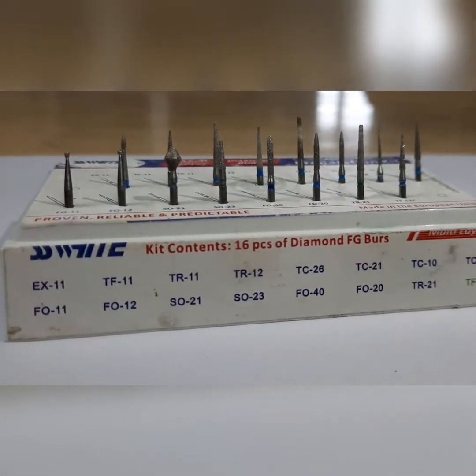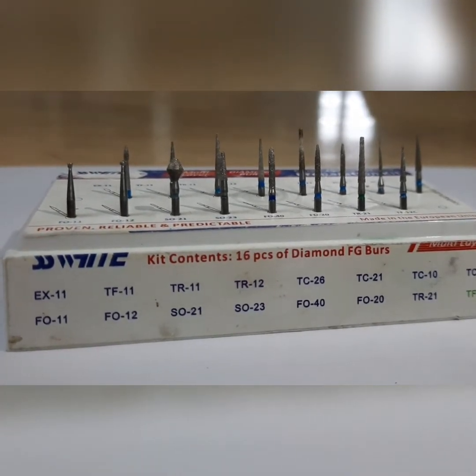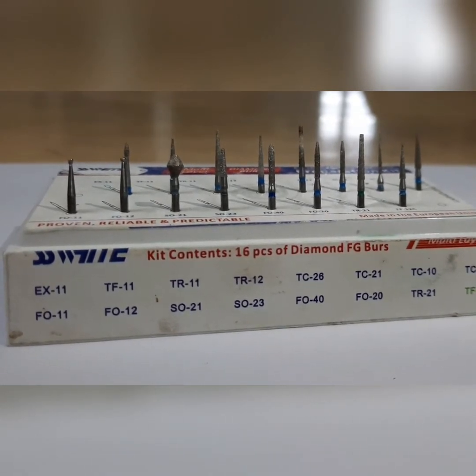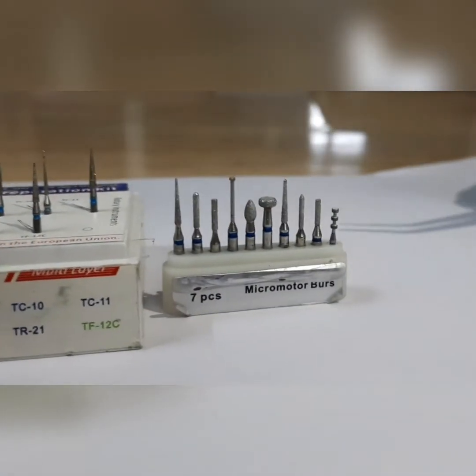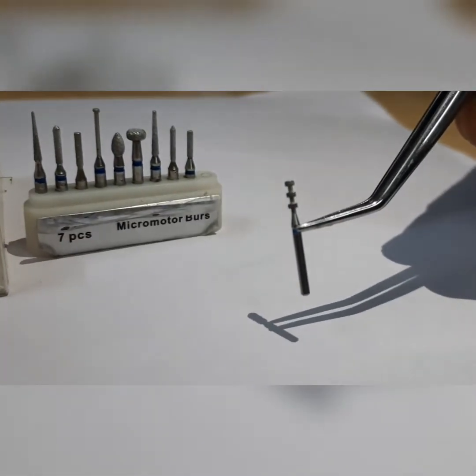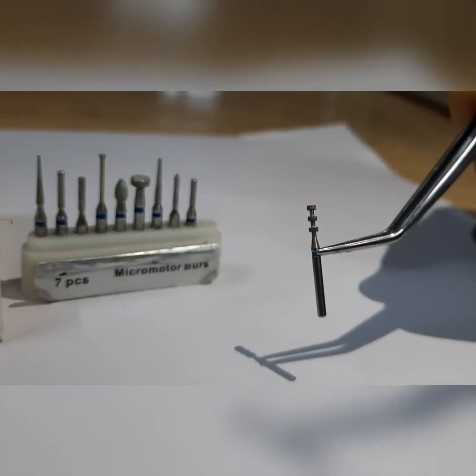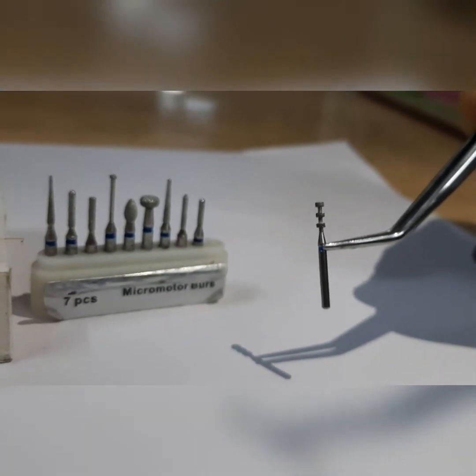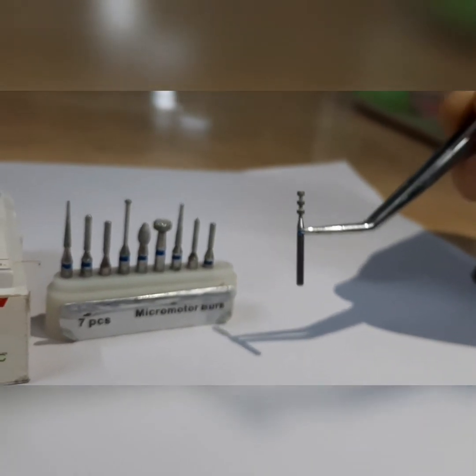For gross cutting we initially use a coarse bur, and in sequence we then use fine and ultra-fine burrs for finishing of a preparation. For initial preparation we use depth cutting burrs. This burr has rings which we use for initial cutting of the tooth — the particular diameter indicates the depth of tooth reduction achieved.